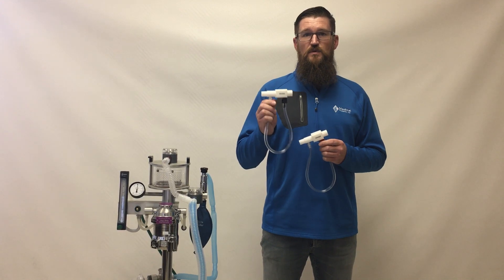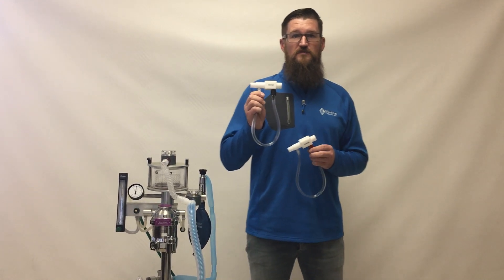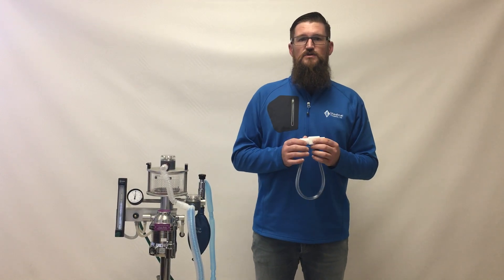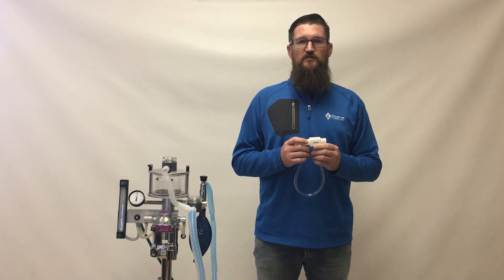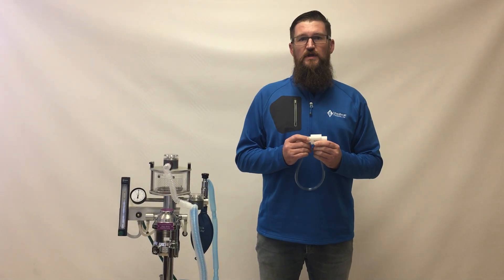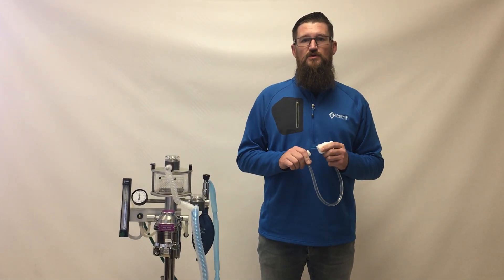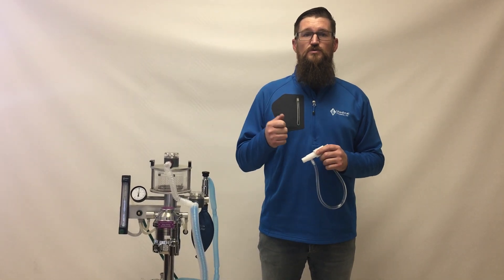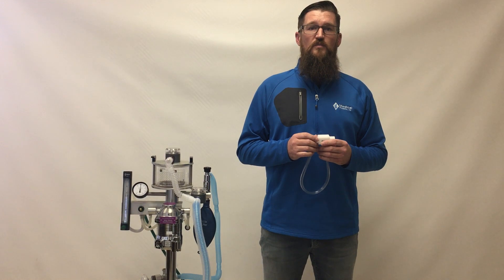For demonstration purposes we're going to focus on the JDM Safety 20. It fits into the rebreathing circuit of the anesthesia machine and will relieve excess pressure building up due to the closure of the pop-off valve, accidental depression of the occlusion valve, or equipment malfunction.